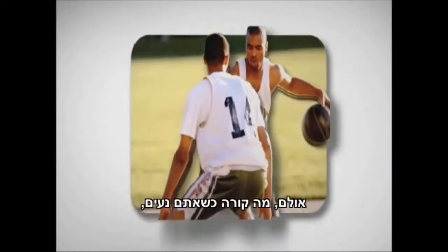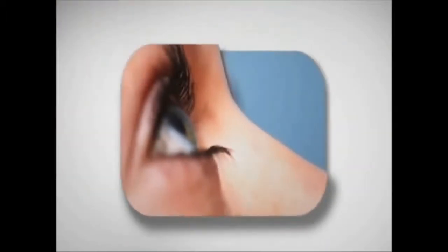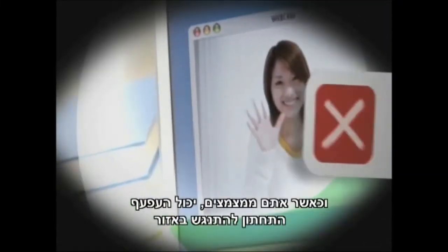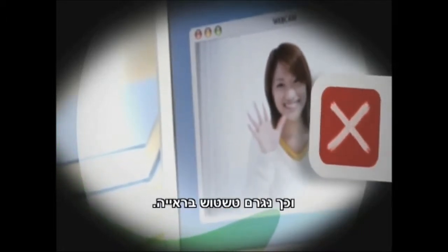But what if you move around, or move your eyes quickly, or tilt your head — like when you lie on the couch to watch TV? Now gravity can pull the lens out of position. And when you blink, your lower eyelid can bump the thick area, or ballast, knocking the lens out of place. And that can mean blur.